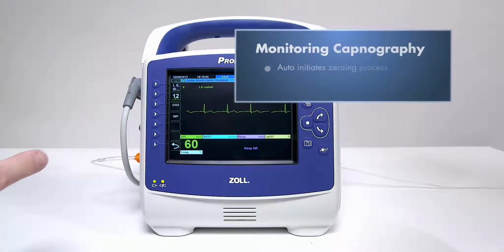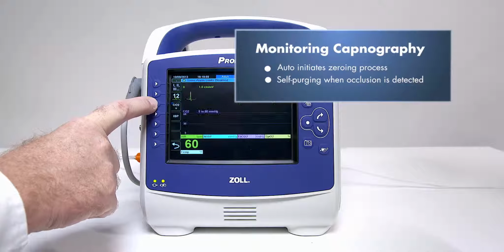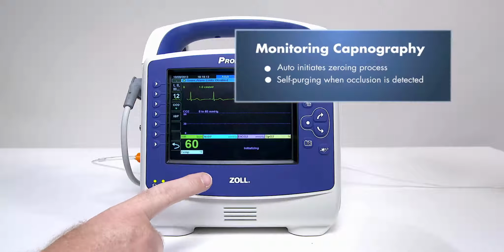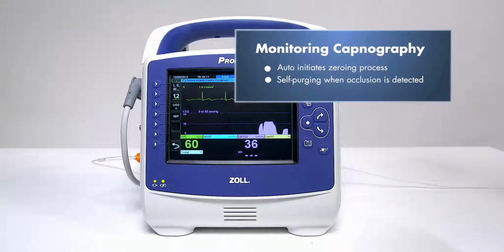The monitor also auto-initiates the zeroing process when a change in operating conditions is detected, such as ambient air temperature or barometric pressure. In addition, when an occlusion is detected, the device will purge the capnography sampling line on its own.